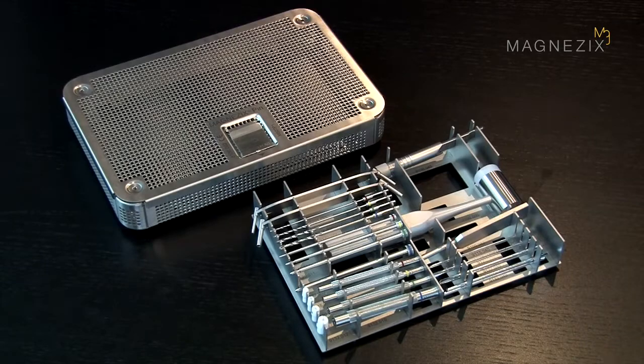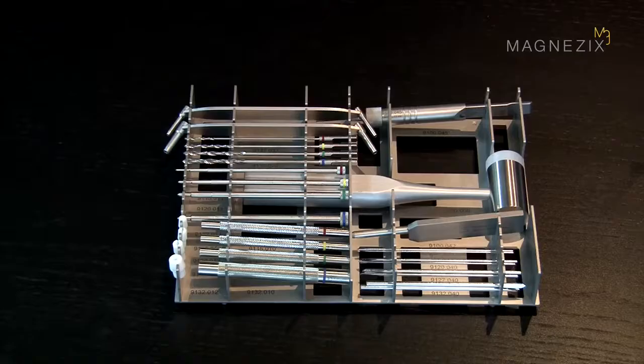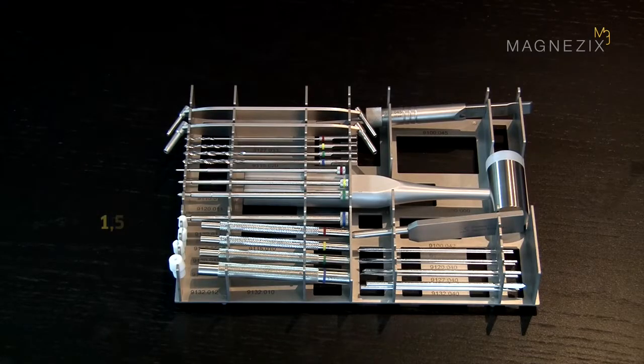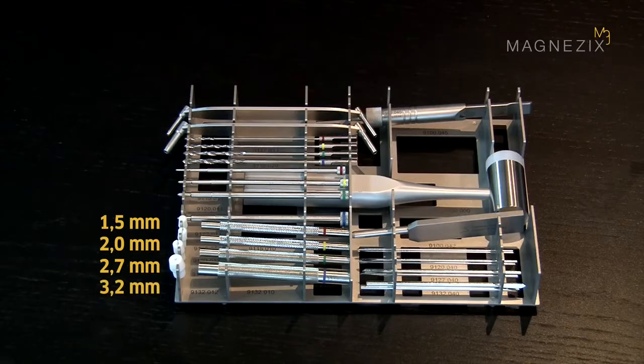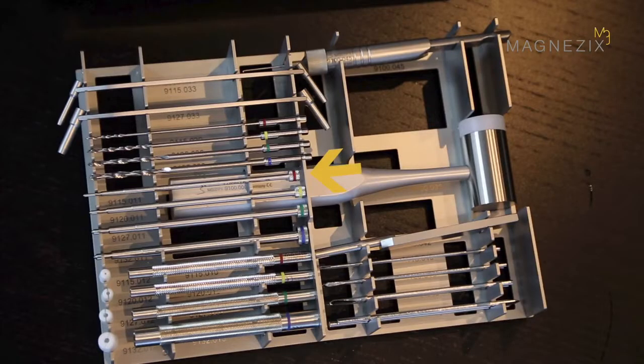This overview shows a complete Magnesix PIN instrumentation set for all dimensions from 1.5 mm through 2.0 mm and 2.7 to 3.2 mm. Instruments for different dimensions are color coded.